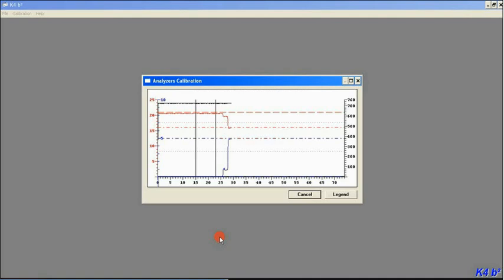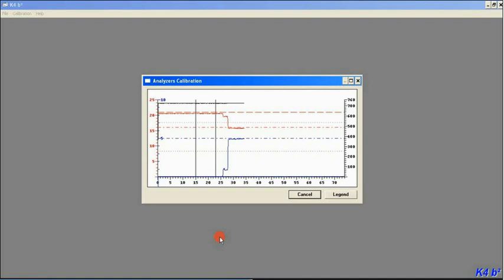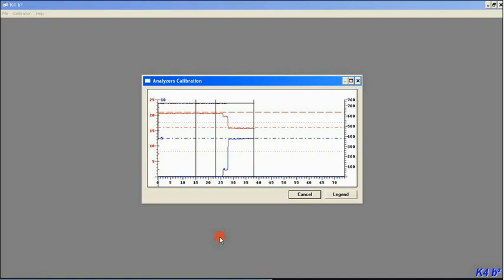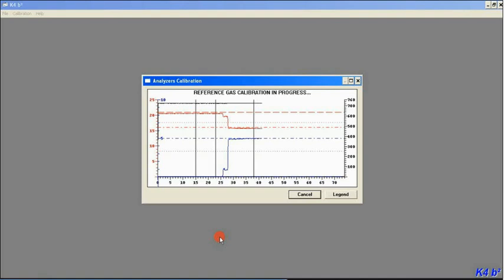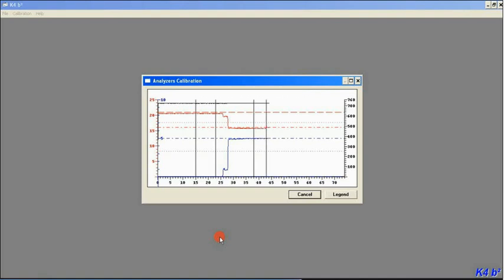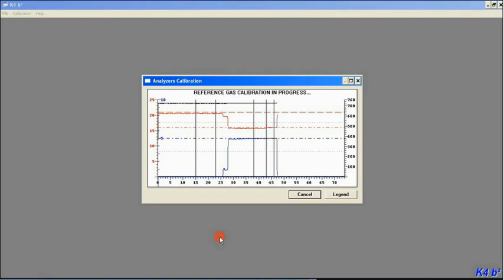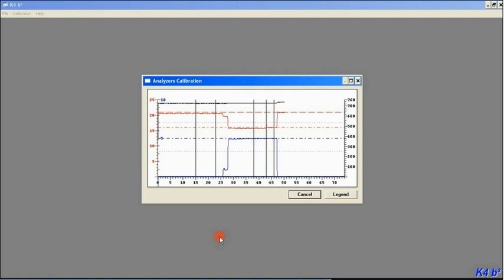You'll see that happen once you see the red and blue lines. Then you'll see them going up and down, and that's changing the oxygen readout measurements. Just like I said in the last video, you'll see about 13 lines total before it's going to tell you that you're all done with the gas calibration.